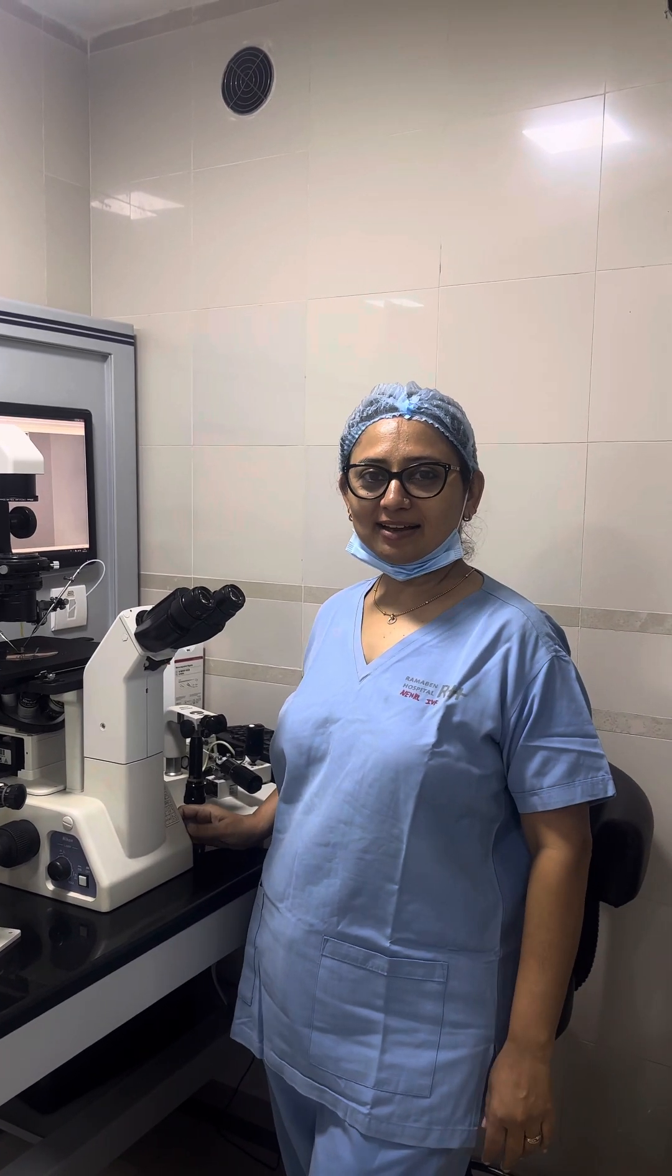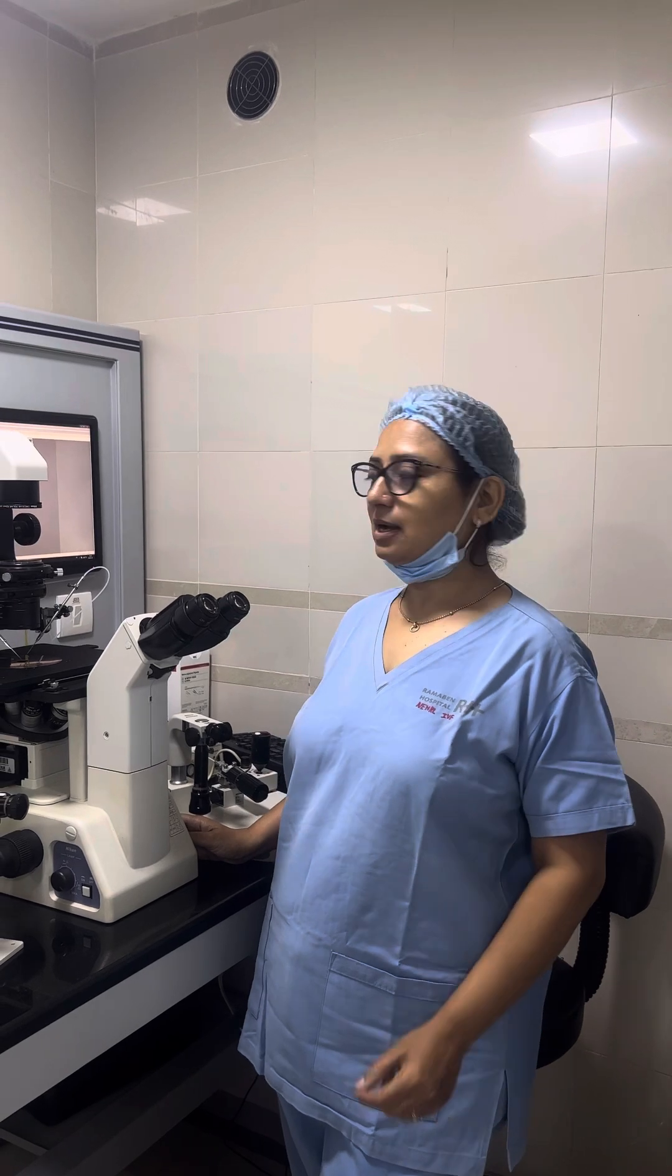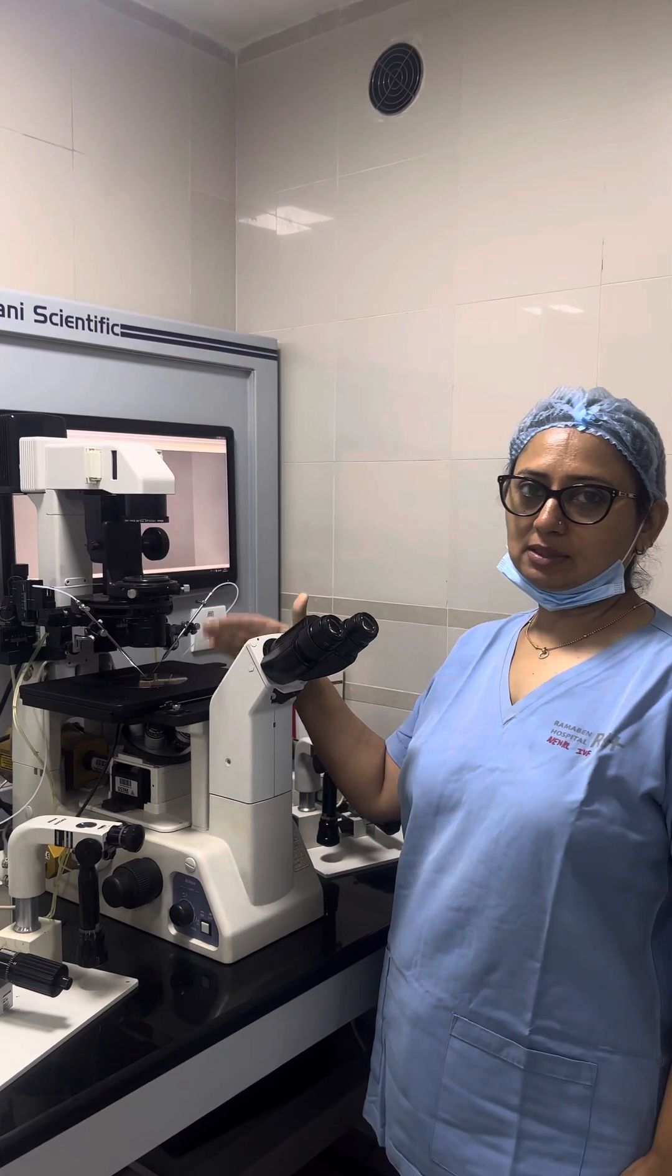Hi, this is Nehal Rayek, Embryologist from Sural. Today I am going to share some tips regarding setting the micromanipulator and ICSI microscope.